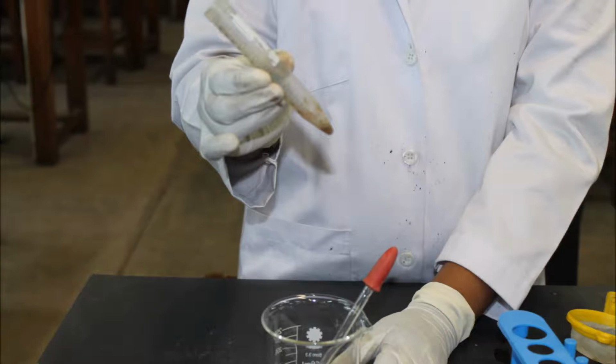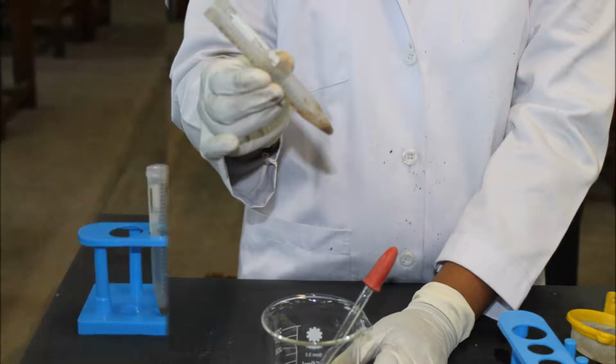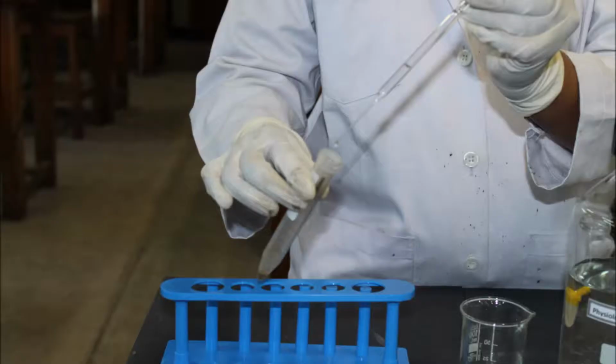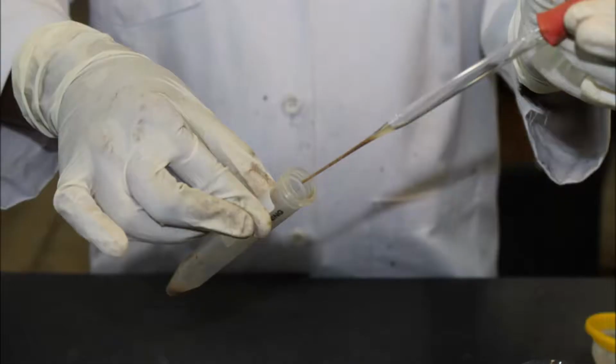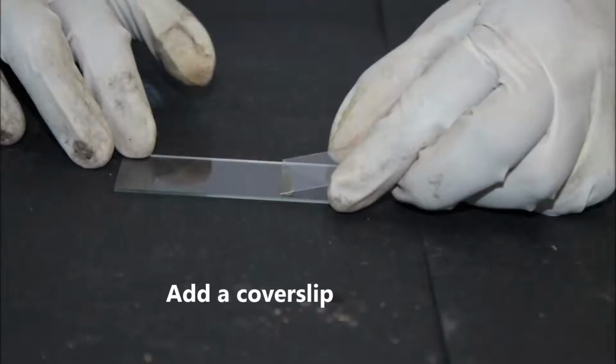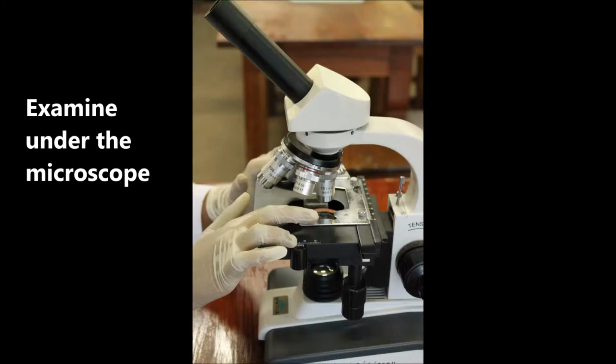If necessary, you can remove the excess ethyl acetate using a cotton-tipped applicator stick. Because if there is excess ethyl acetate in the smear of the sediment, there will be bubbles present, obscuring the material that you are trying to see. You can resuspend the sediment in 1 to 2 drops of saline or formalin. Mix the suspension well and take a small amount of this material to a slide. Add a cover slip and examine using the microscope.